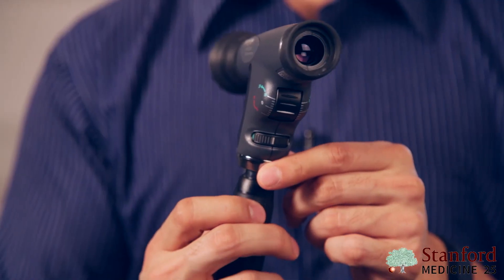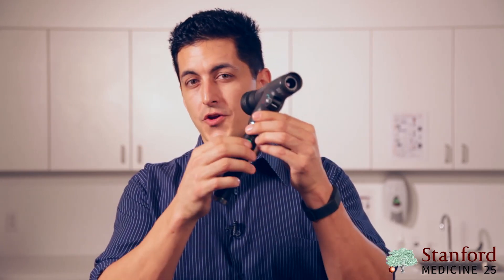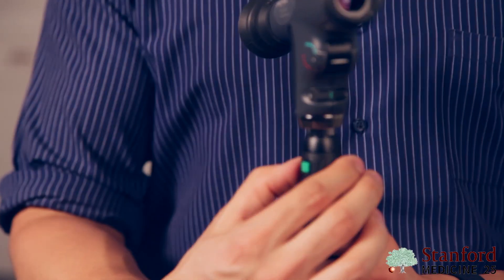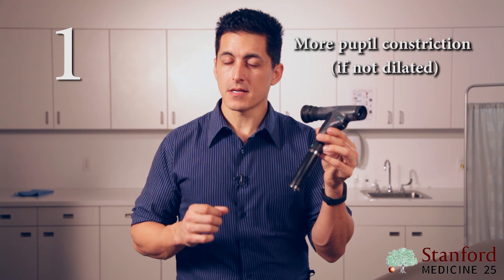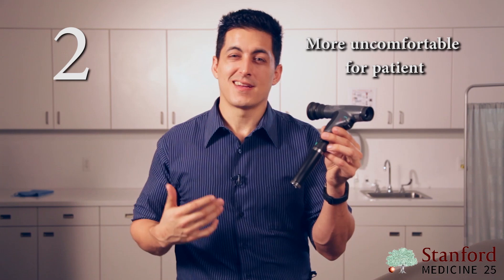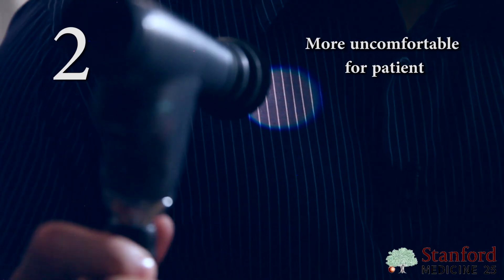For the ophthalmoscope, there are three main things to know. The first one is light or brightness. All you need to do is press the little button and twist it, and the more you twist it, the brighter the light will become. There are two things to remember: the brighter you make it, the more pupil constriction you may get if you're not using a dilator, and the brighter it is, the more painful it'll be for the patient, so you won't be able to visualize the retina as long.